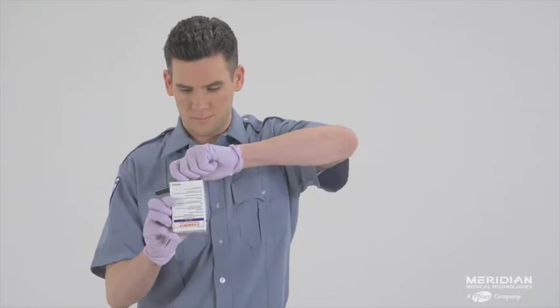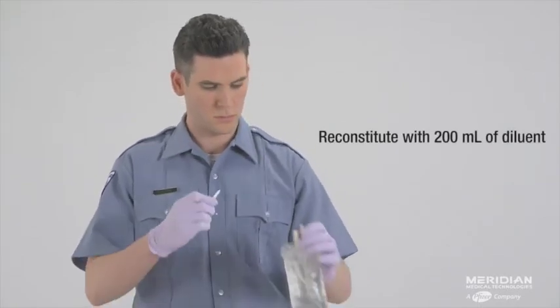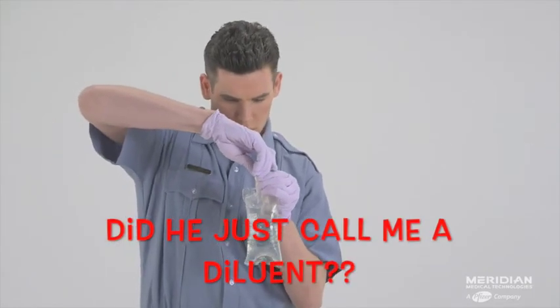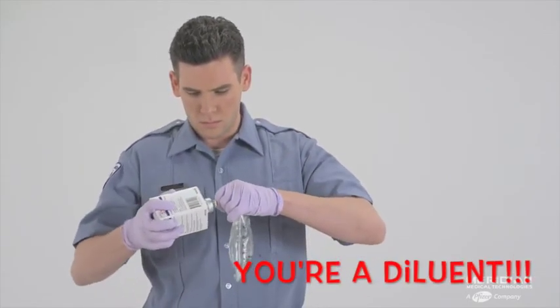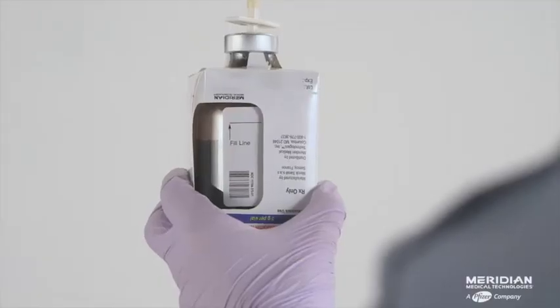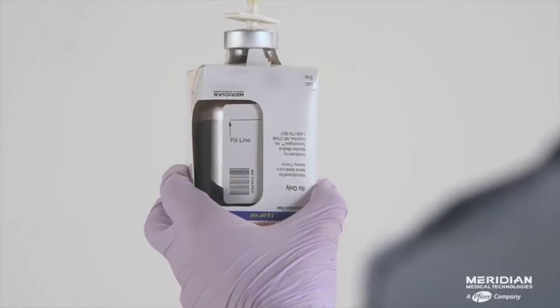With the 5-gram vial in an upright position, begin by reconstituting the hydroxocobalamin with 200 milliliters of diluent using the supplied sterile transfer spike. The line on the vial label represents 200 milliliters of diluent. Hold the vial level to make sure the diluent reaches the fill line.